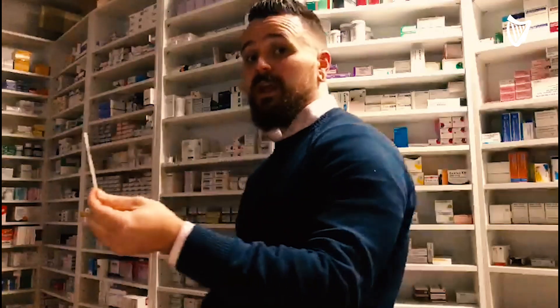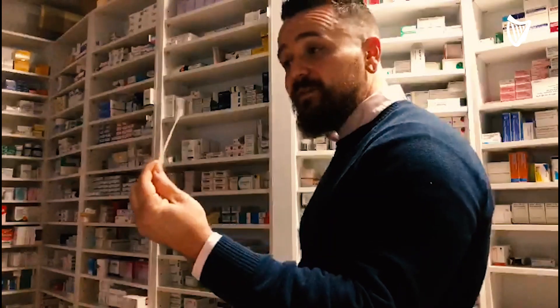What we need to remember is that we can't touch the top of these swabs. The cloth or foam on the top is sterile and that's where we need our sample to bind, so that we can add it to the reagent and then to the plate to get our result. So it's very important we don't touch this off anything other than the test area — which, for the purposes of this, is either nostril of the nose. I'm going to stand with my side to the camera so that you can see effectively.